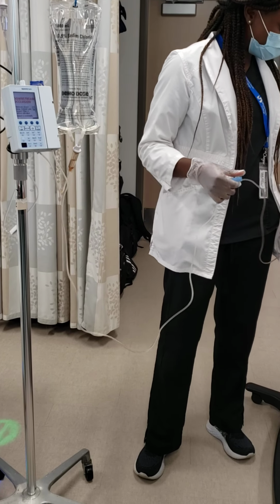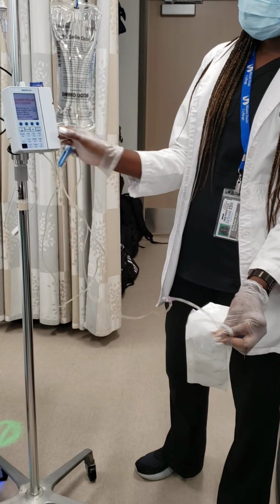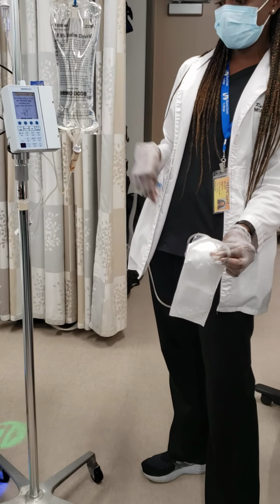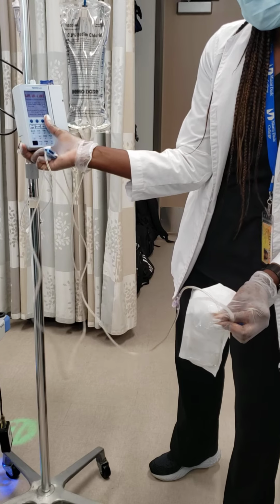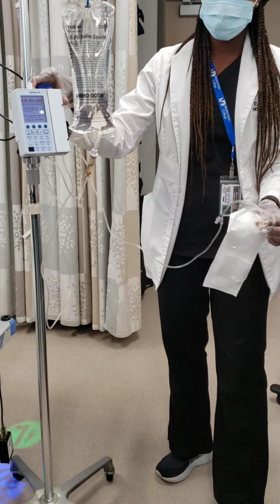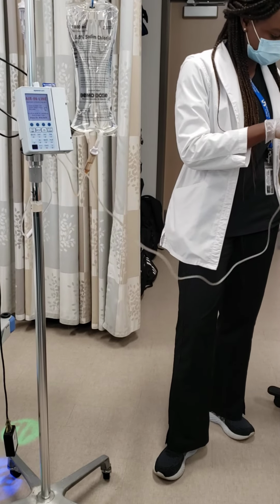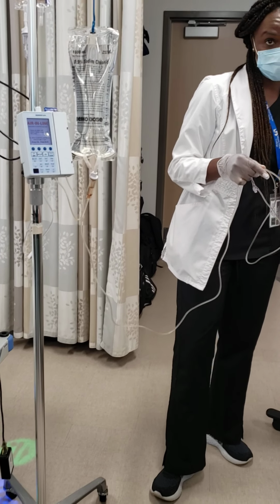So now you'll see what it does. Now it's stopped. Okay. And it's asking you, do you see that the secondary is dripping? And then you say yes, it's dripping. Now there's air in the line. I wanted to show you that. I actually saw the air, but I wanted you to see how it looks as well. So when there's air in the line, it will tell you that there's air in the line too. And you now have to stop it, and I'll show you how. You have to stop it, and then you actually have to prime it again.